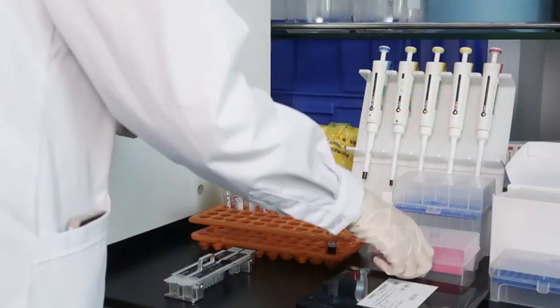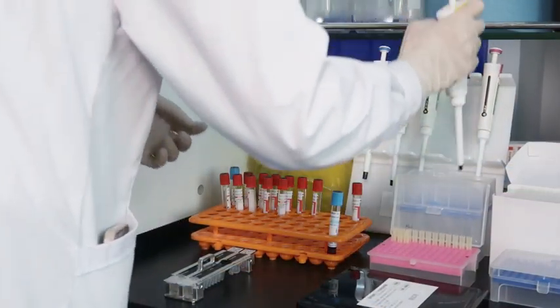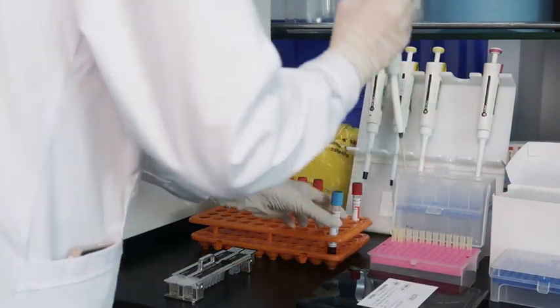Second, use the pipette to drop the sample into the sample well of the cartridge.